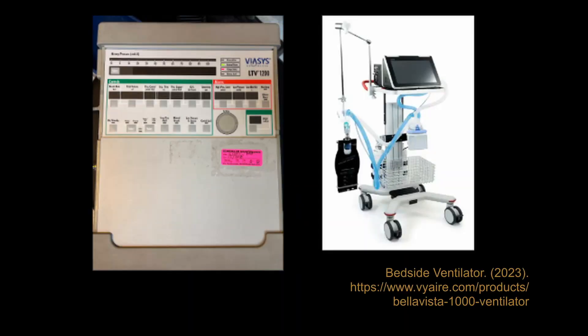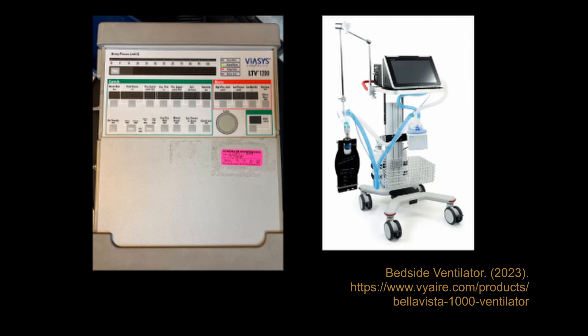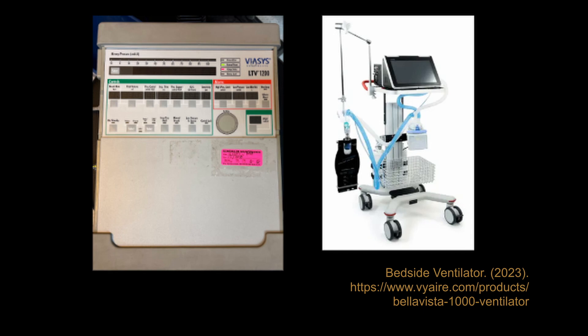Ventilators are bedside equipment that act as bellows to move air in and out of the lungs. They are necessary for medical situations where assisted breathing is needed, such as in cases of chronic obstructive pulmonary disease, strokes affecting respiration, and pneumonia. Ventilators can also be used on infants, which involves different input and output settings.